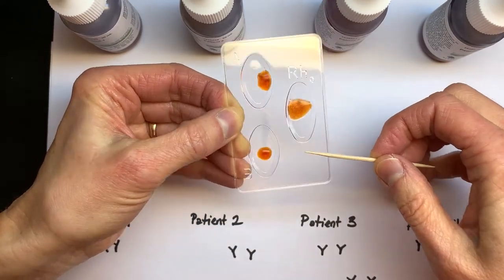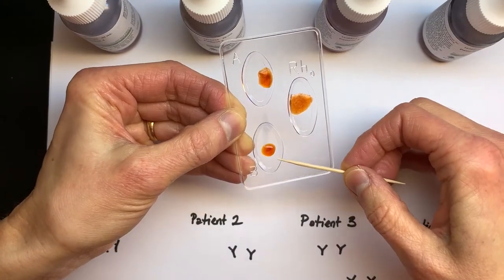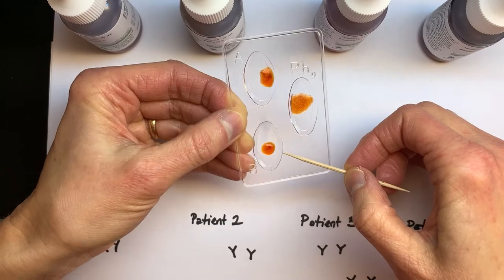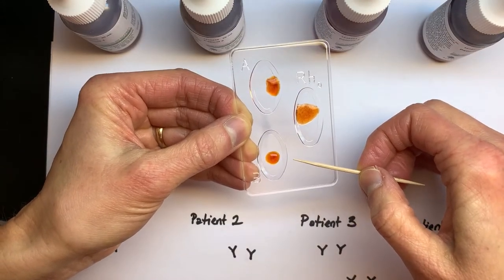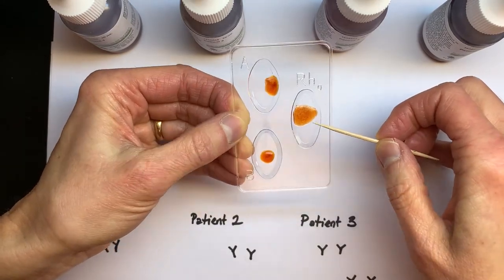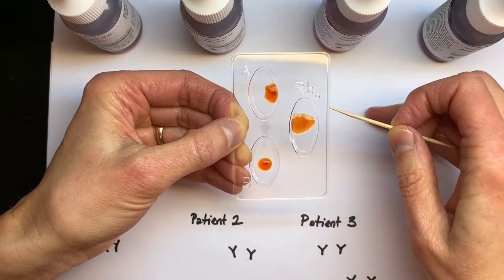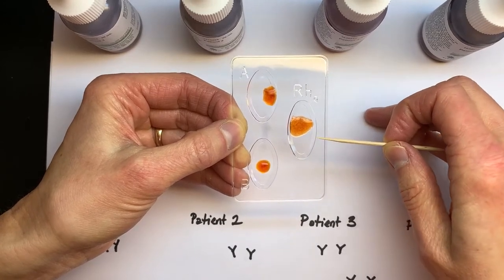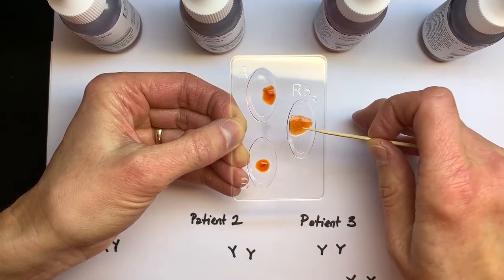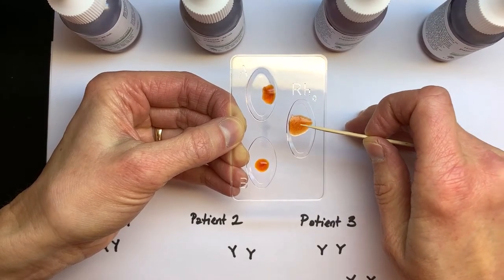Let's look at B. B, in relationship to A and RH, looks like it did before — a little shimmery, liquidy, not much going on there, still very liquidy. The RH, on the other hand, has also gotten thickened up, so there is a clumping occurring in the middle. That means the RH antibodies did find a blood cell that has the RH factor on it, and so they surrounded it, bound to it, and put it in the middle — an agglutination occurring right in the middle.